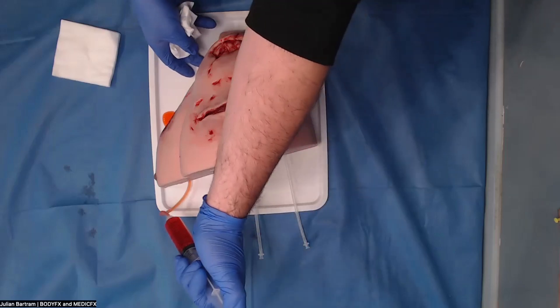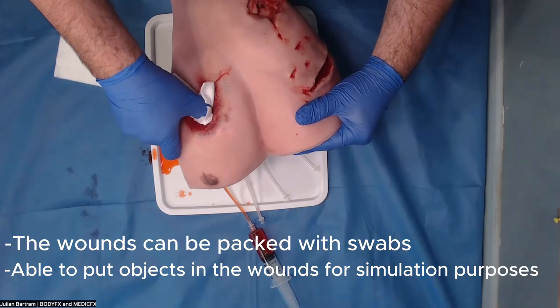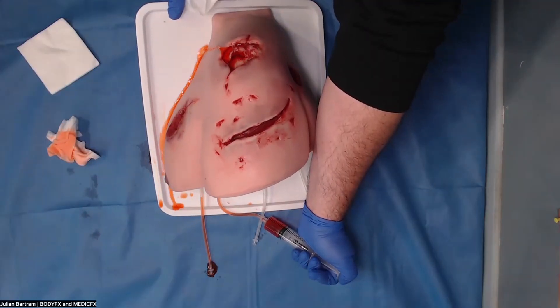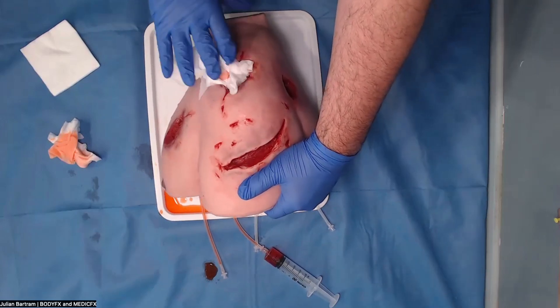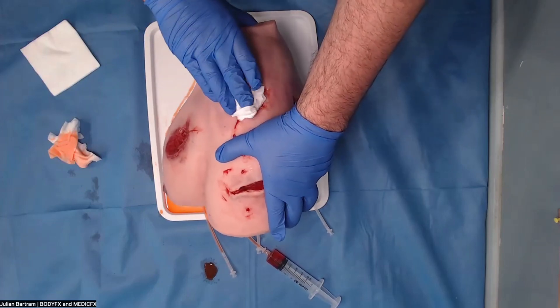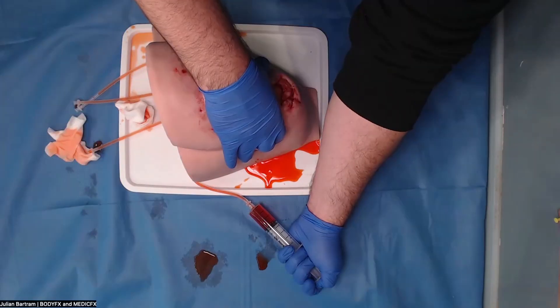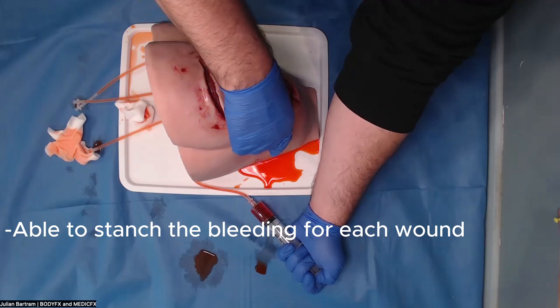As you can see here, this wound at the front of the chest — these wounds can be packed. If you want to put foreign objects in there for your participants to sound, locate and remove, then you can. The bleeding point for the shoulder is quite deep into the joint there, so you can just pack it, put pressure on, and then obviously the facilitator of the training can stop the bleed for your participants.